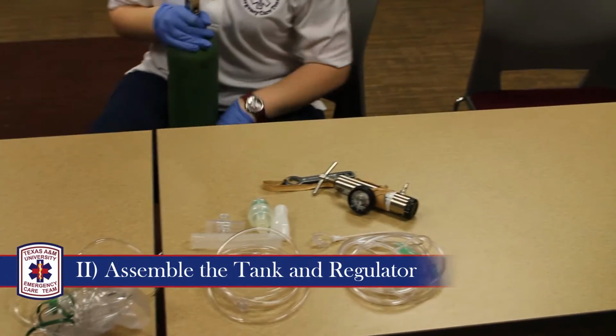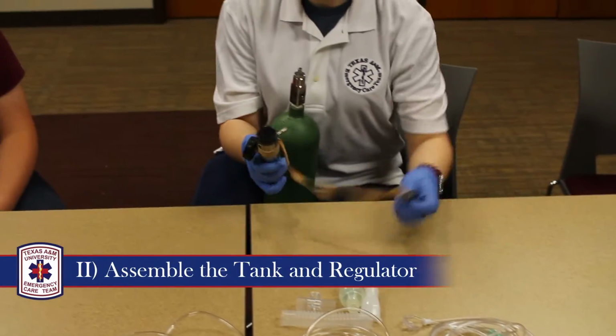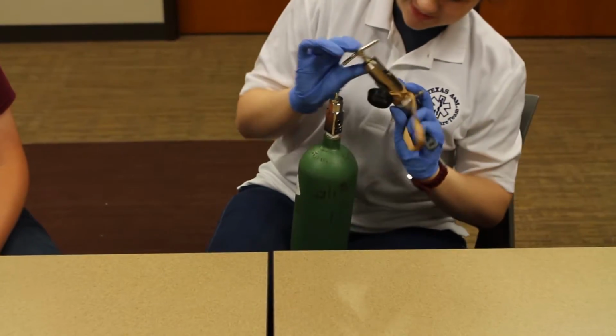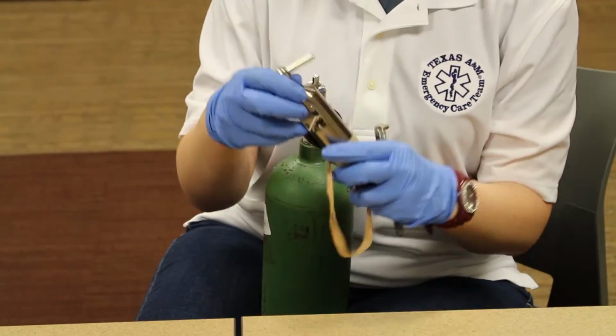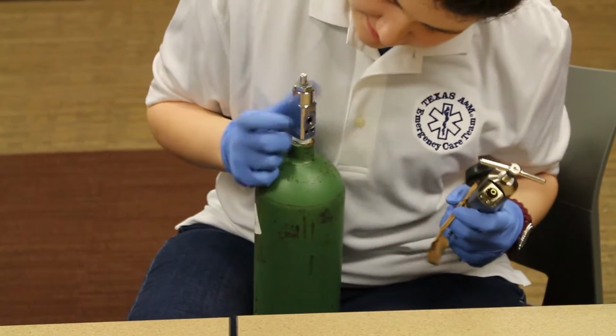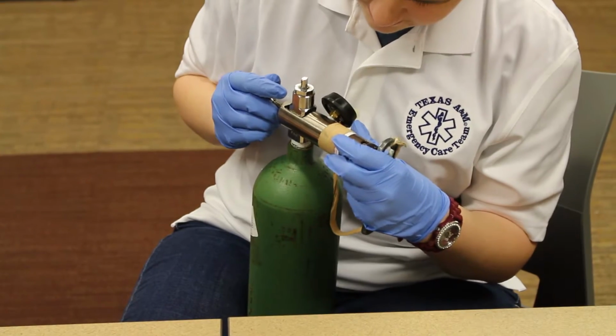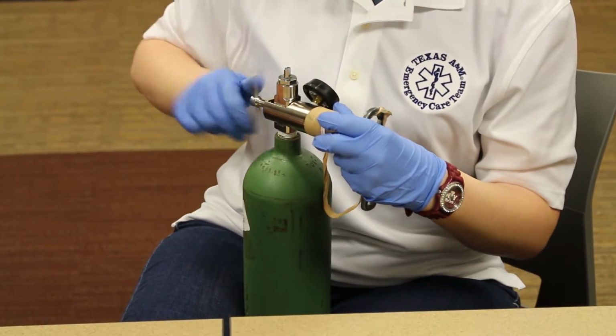To begin, assemble the regulator onto the tank. The two prongs on the inside of the regulator should match exactly to the holes on the oxygen tank head. Insert the two prongs and tighten the screw.